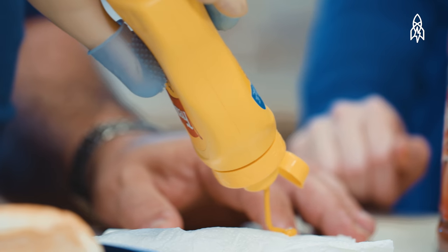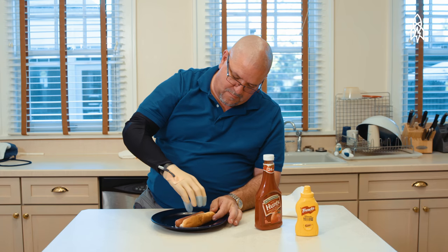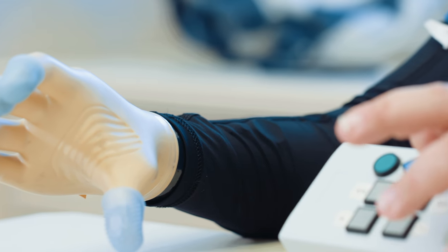We're at the point where subjects can use their prosthesis at home. They can have sensation while they're at home. It makes them two-handed again. It brings back their hand. It makes them whole.